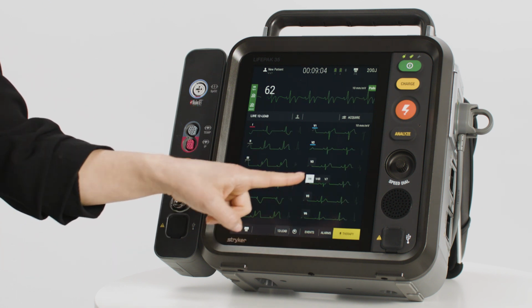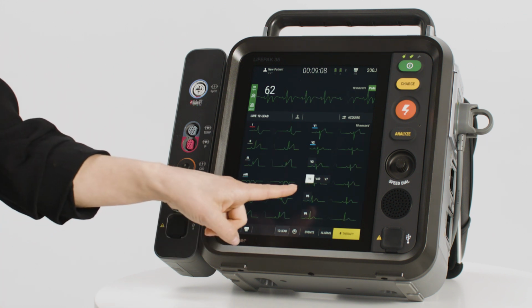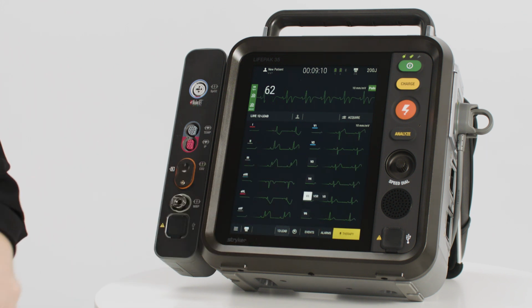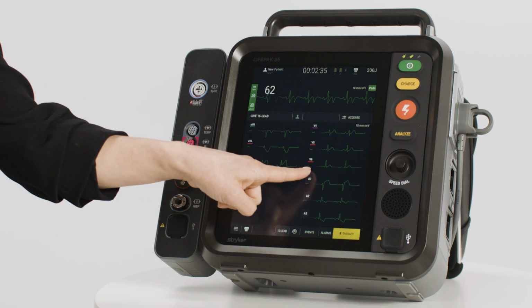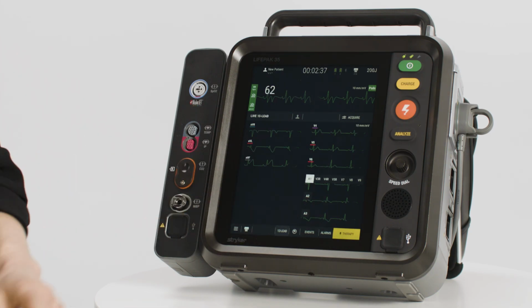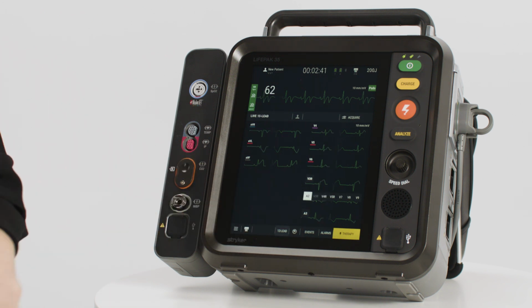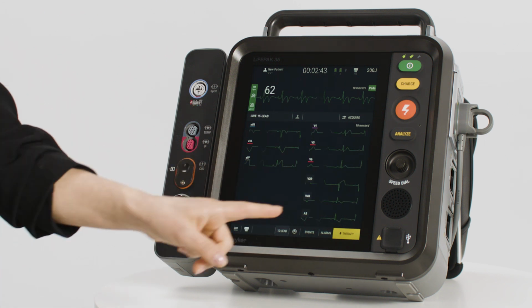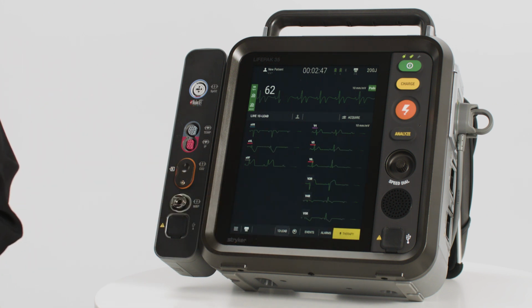When the 10-wire ECG cable is attached, leads V4 through V6 can be assigned alternate labels to reflect the actual wire locations. The alternate labels will appear on screen, in printed reports and in transmitted reports. When the additional leads are used, A1 through A3 can also be assigned labels to reflect the wire location. To acquire the 12-15 lead ECG report, press the Acquire button.